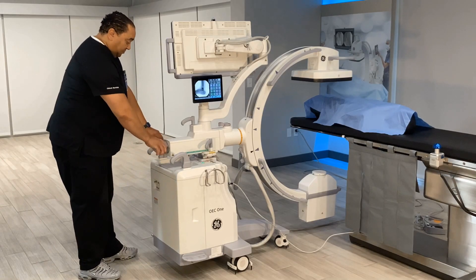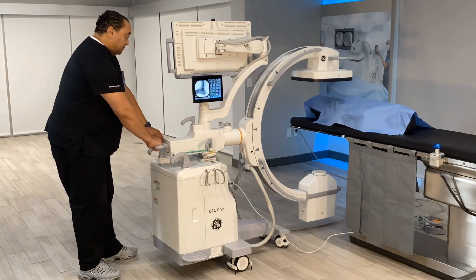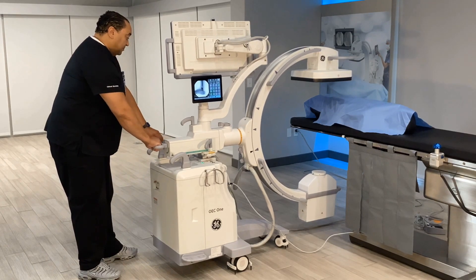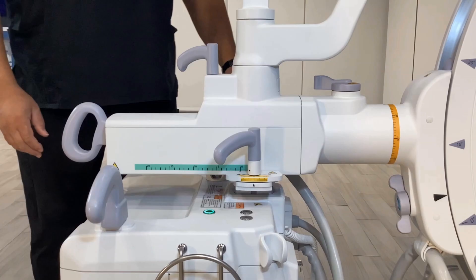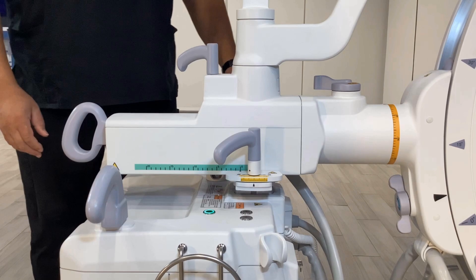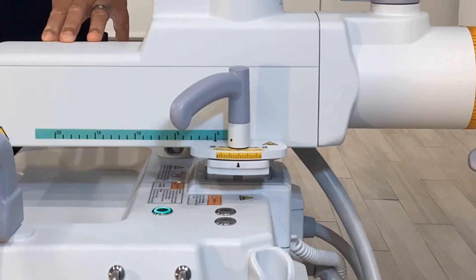The cross arm extends a maximum of 20 centimeters. Use the centimeter scale located on the cross arm as an aid in positioning. The horizontal cross arm associates with the color green.